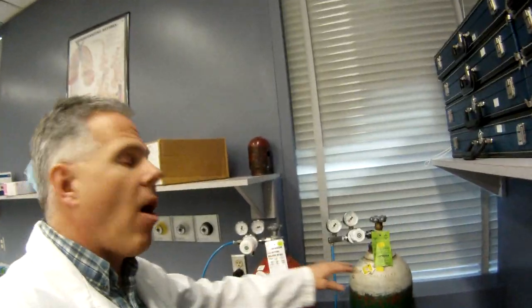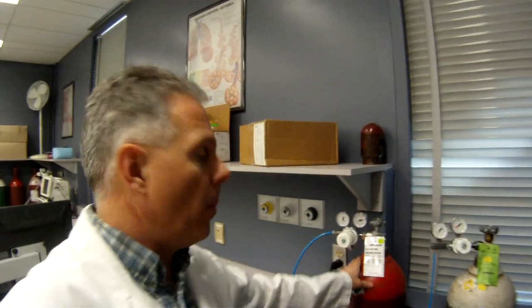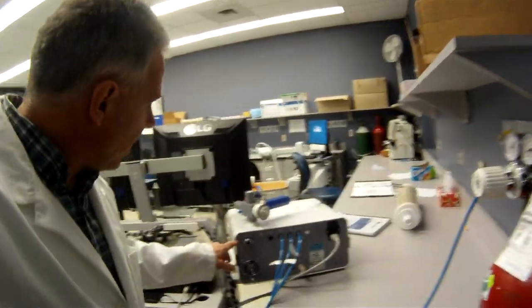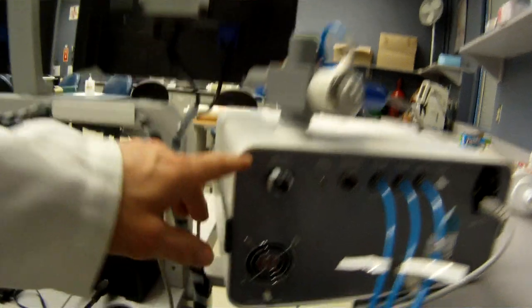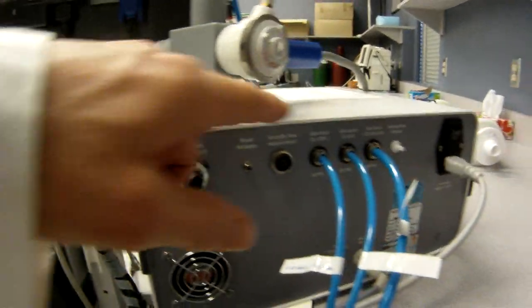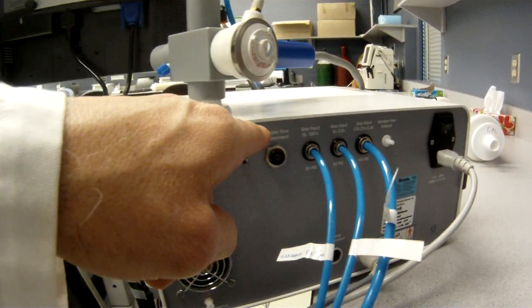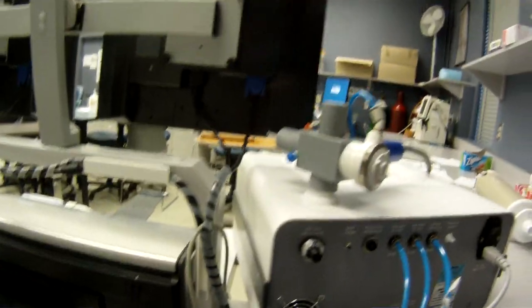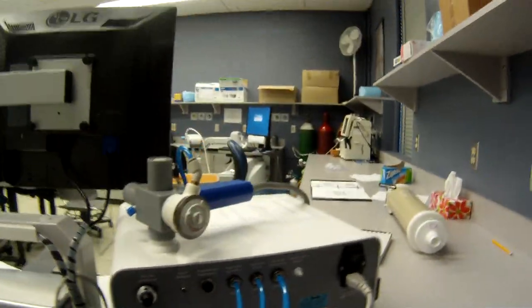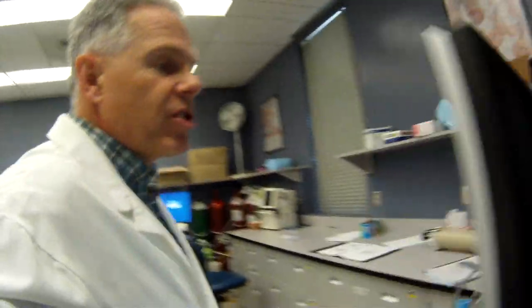We also have to have oxygen and the specialty gas mixture for doing tests like the nitrogen washout and DLCO. So they plug into the back of the unit here and it's important that you realize that we've got this zero adjustment unit here and where the gases plug in at specific pressures. I'll show you this unit here in just a second. So there's not too much to see at the back here. It is important that the gas analyzer is turned on and warmed up prior to use or calibration.